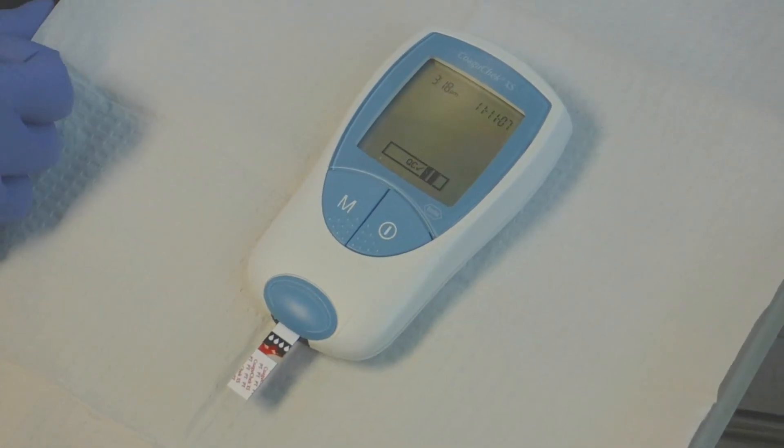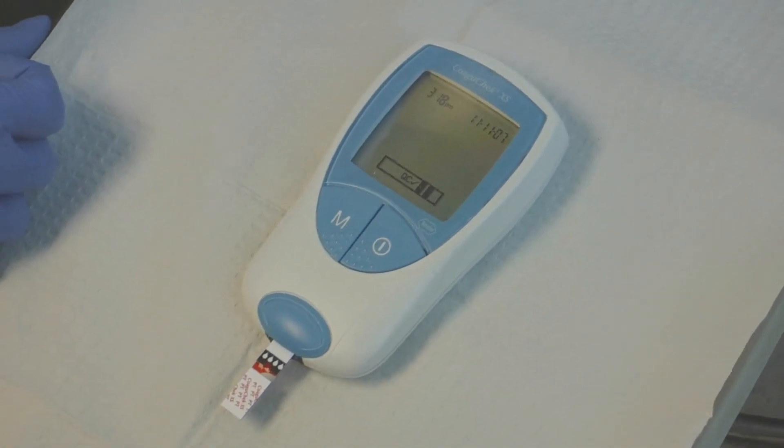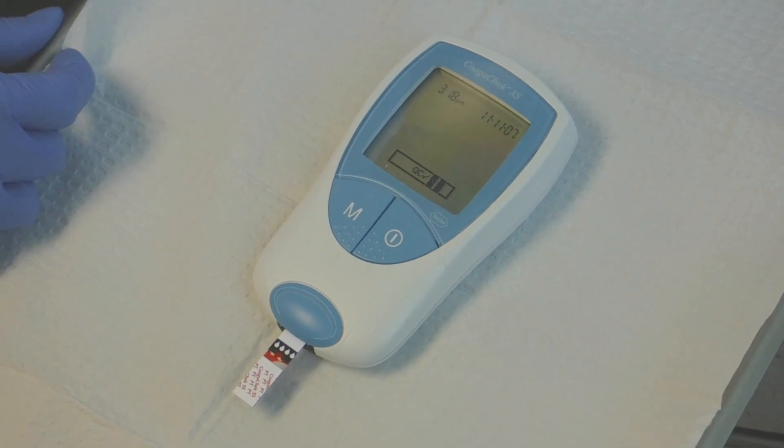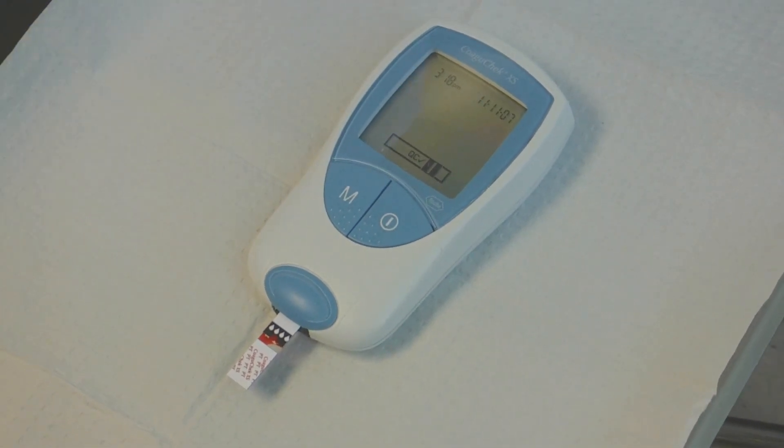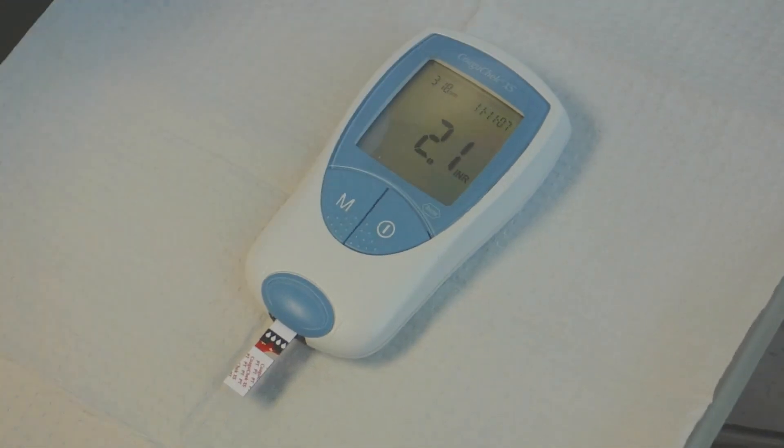This is so cool, because I've got to do this for the rest of my life. Now what about the strips? Well, I only bought six, so I'm going to buy more.